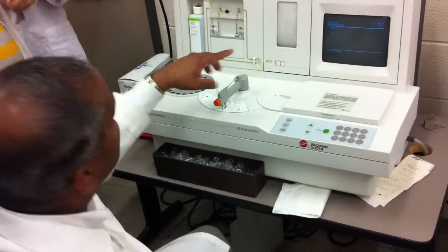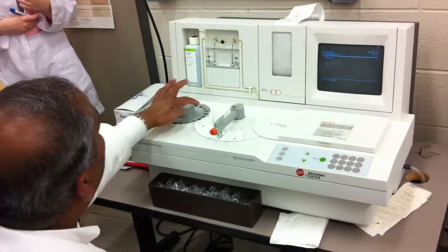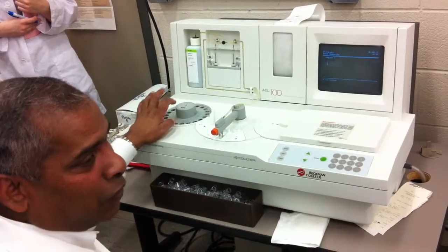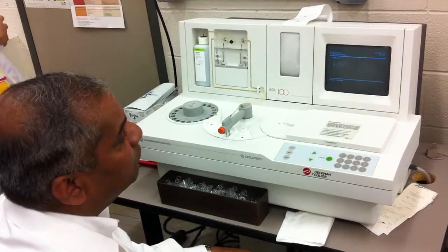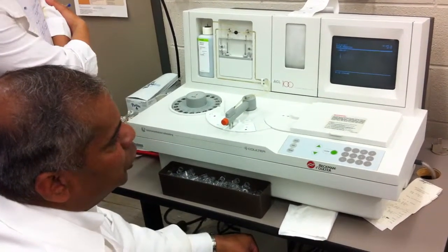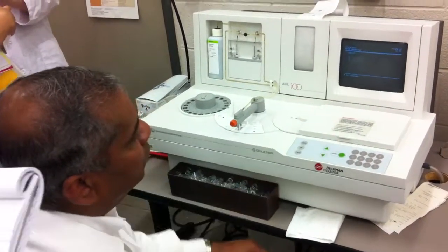See, so now it's asking you that it's not asking for the pool, but you have 3 controls. If you had specimen, it will do the same thing. Specimen is run just like we're running the controls here. So now it's asking you for your load list to put in what you have in position 1, 2, and 3. And it's showing you here to change.